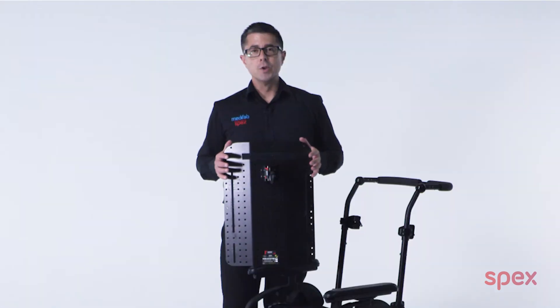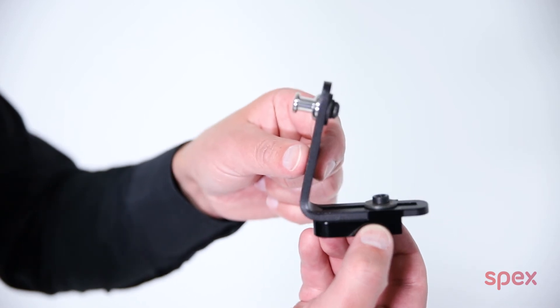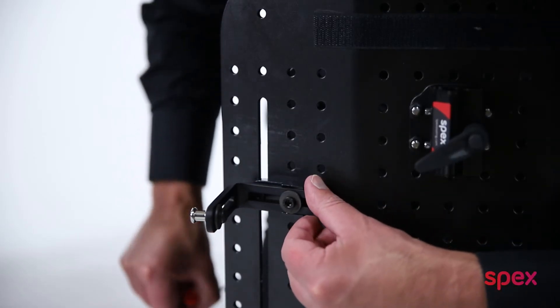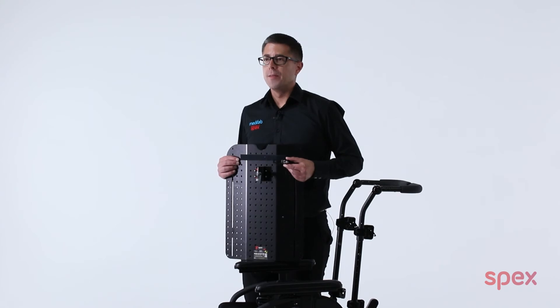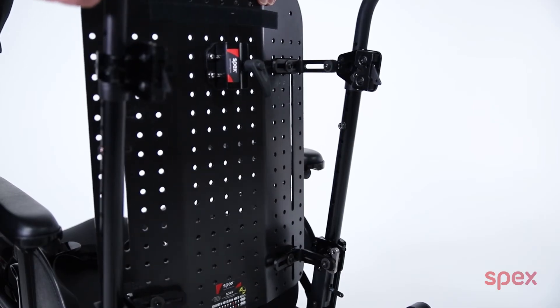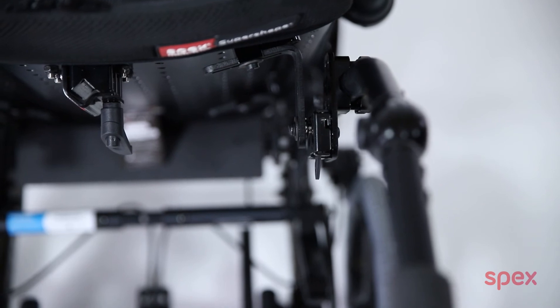I want to show you two methods to achieve this outcome. With the adjustable adaptive bracket kit, these adaptive brackets are a fantastic approach which simply installs to the existing quad or single mount hardware. By installing these to the L brackets, this enables the L brackets and locking pegs to be set beside the vertical slot, allowing the back shell to be installed on a chair up to 3 inches narrower than the back support.